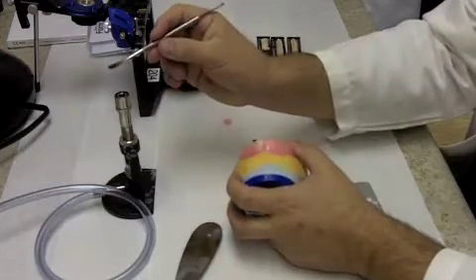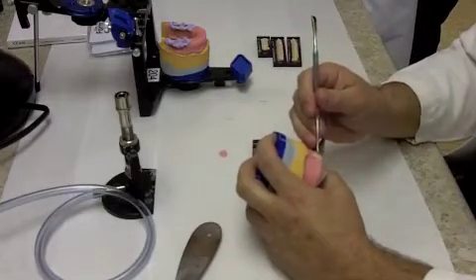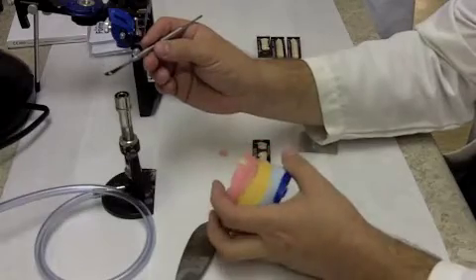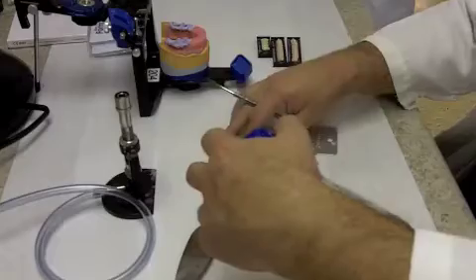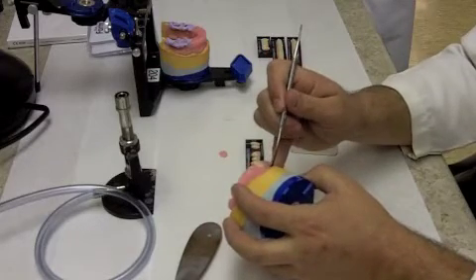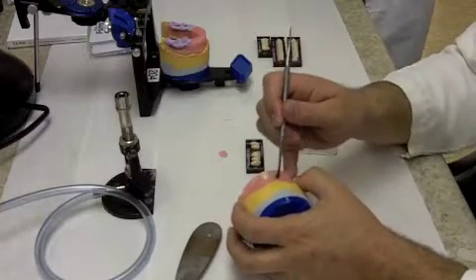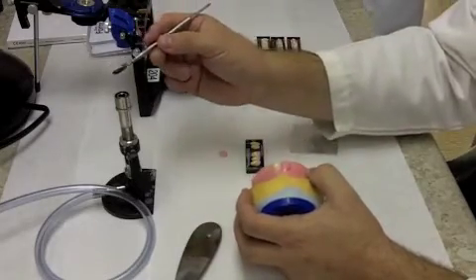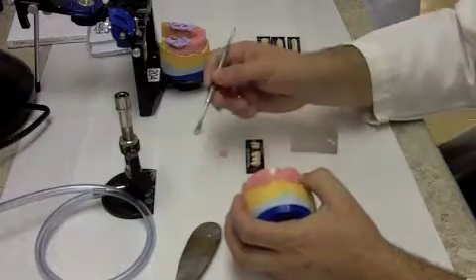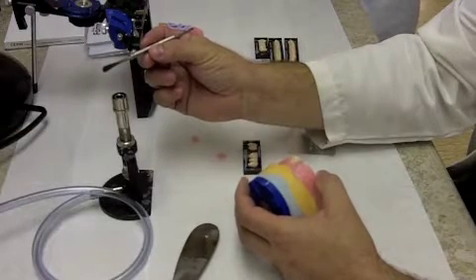You're going to spend quite a bit of time with these central incisors because you really want to take your time setting them. Ideally we're doing this chairside with the patient so we can try it in their mouth for evaluation of midline, incisal edge, and all of that. For our simulated patient, we're going to be utilizing the frenum attachment for our midline, since obviously our patient doesn't have the rest of their face for us to establish a midline.